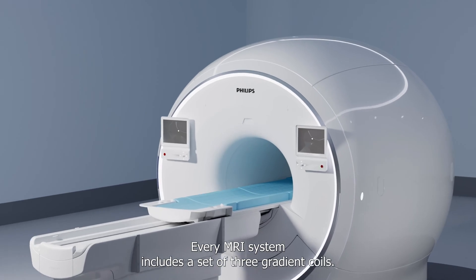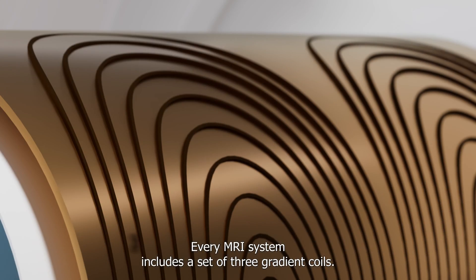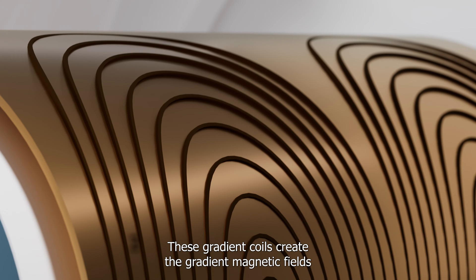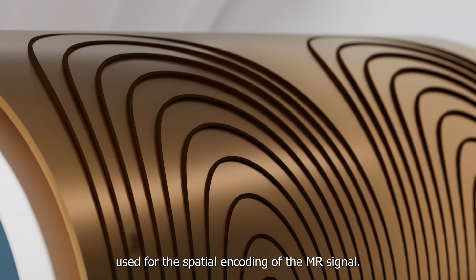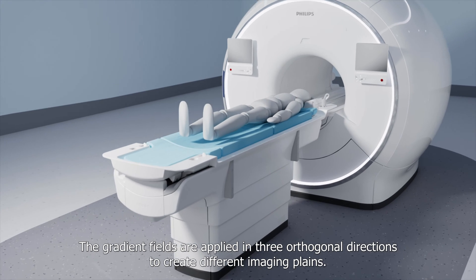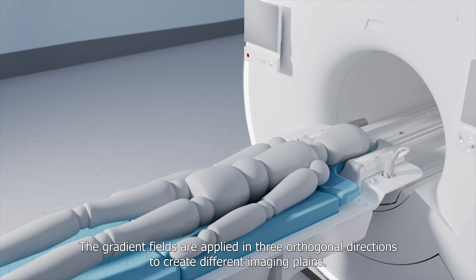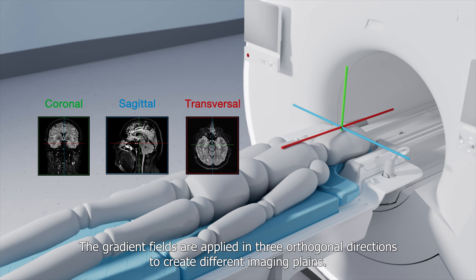Every MRI system includes a set of three gradient coils. These gradient coils create the gradient magnetic fields used for the spatial encoding of the MR signal. The gradient fields are applied in three orthogonal directions to create different imaging planes.